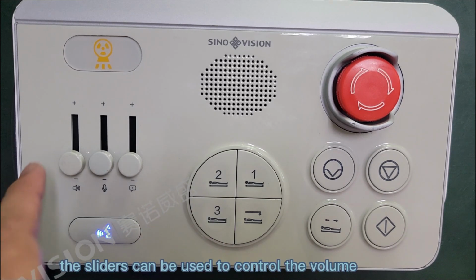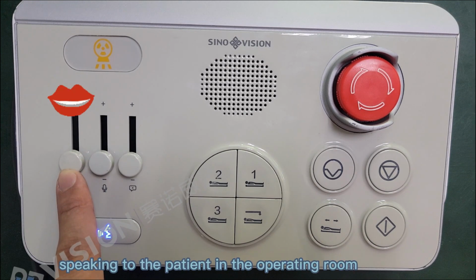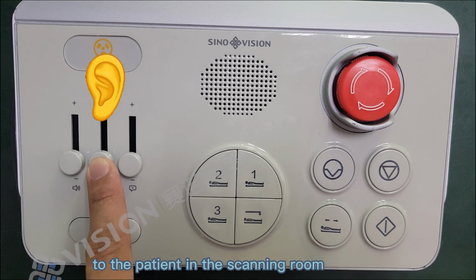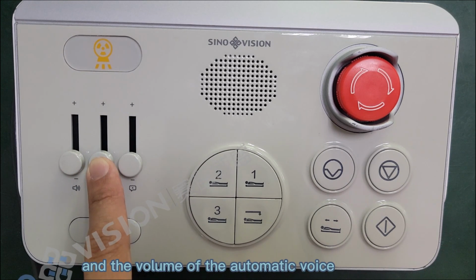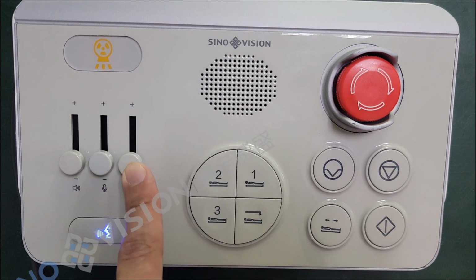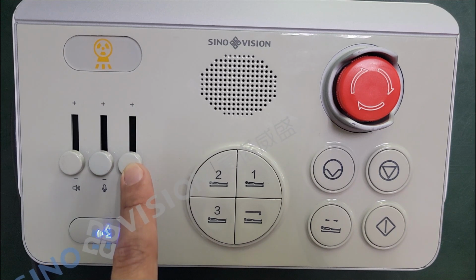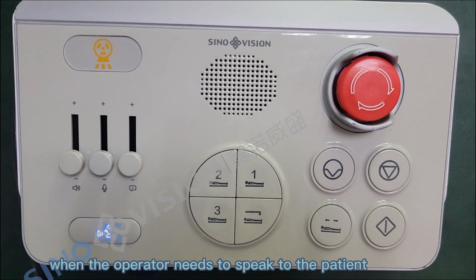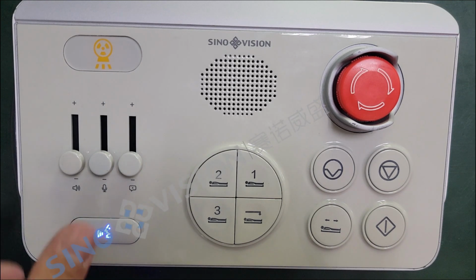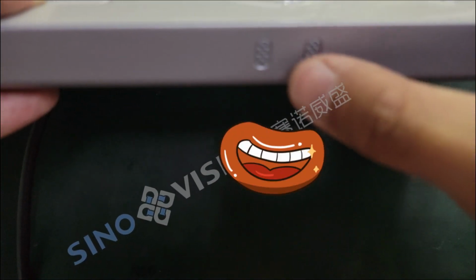The sliders can be used to control the volume. From left to right are the volume of the operator speaking to the patient in the scanning room, the volume of the operator listening to the patient in the scanning room, and the volume of the automatic voice. Push the slider to the top for the highest volume, and the bottom for muting. Intercom button: when the operator needs to speak to the patient, he needs to press this key to speak. Please note that the intercom microphone is located at this position of the CT box.